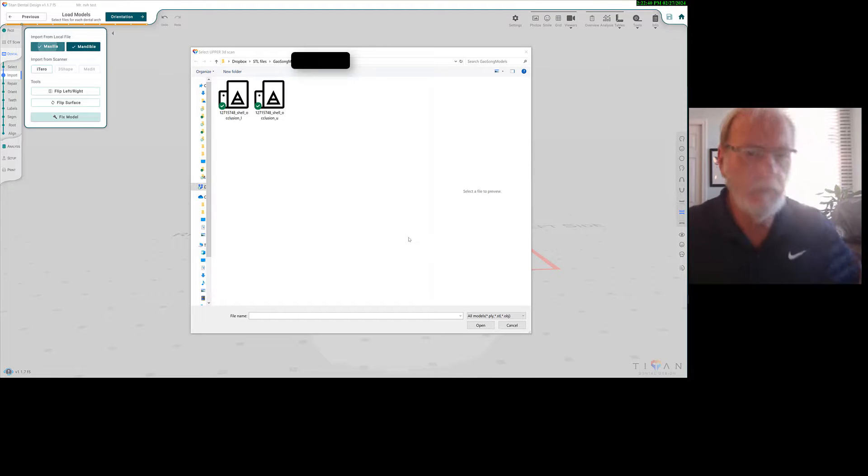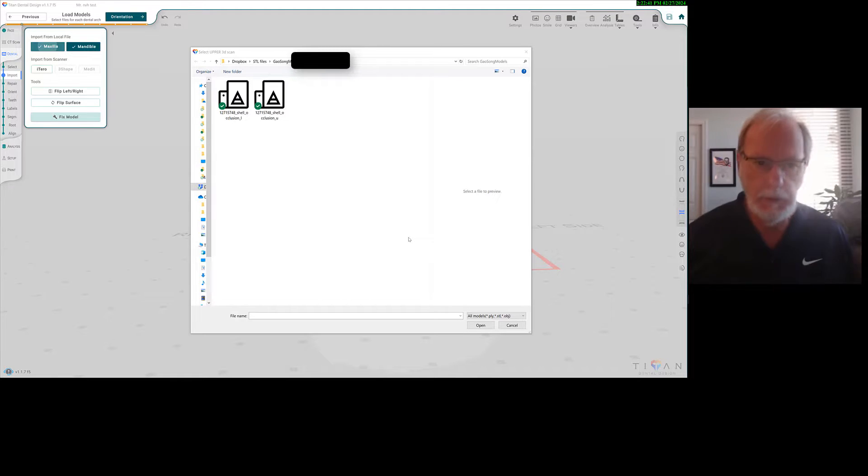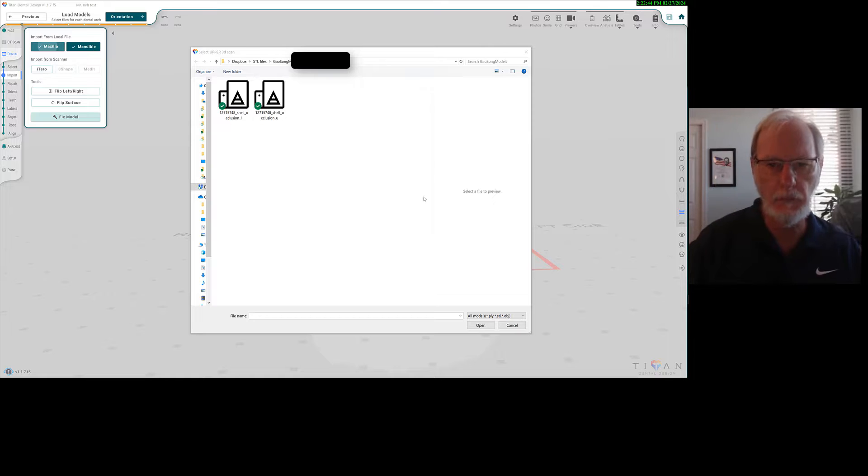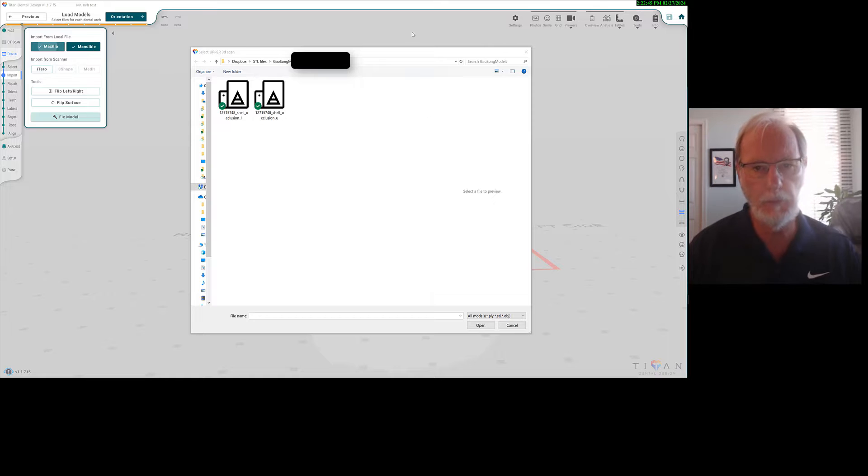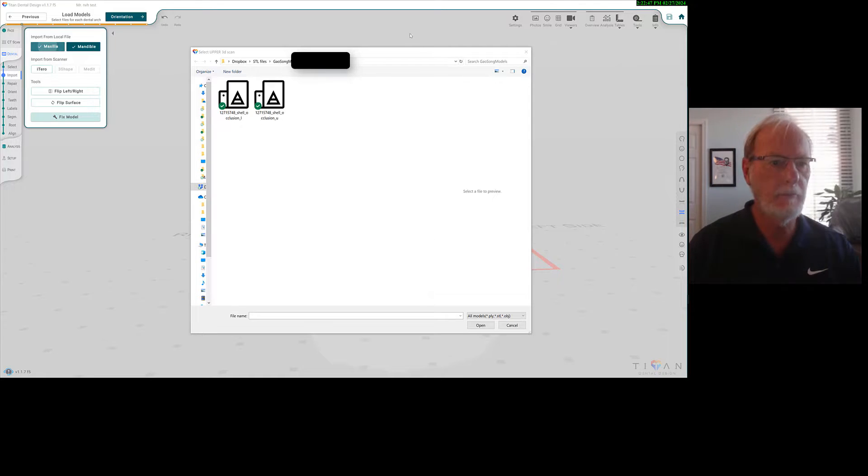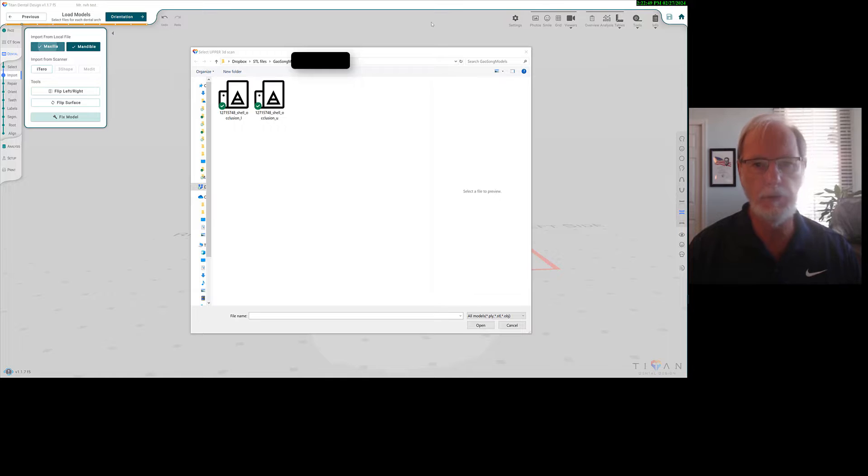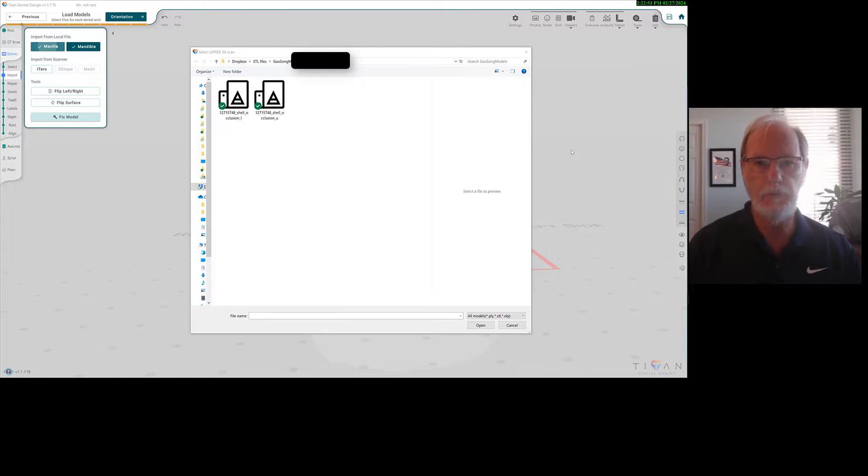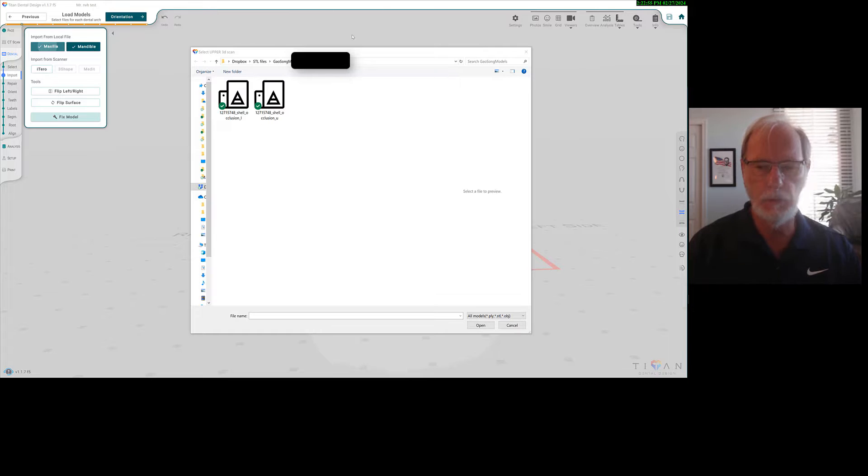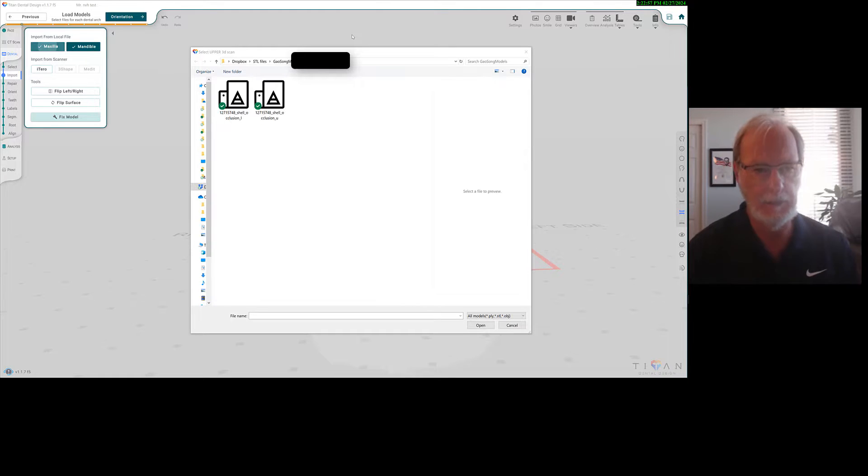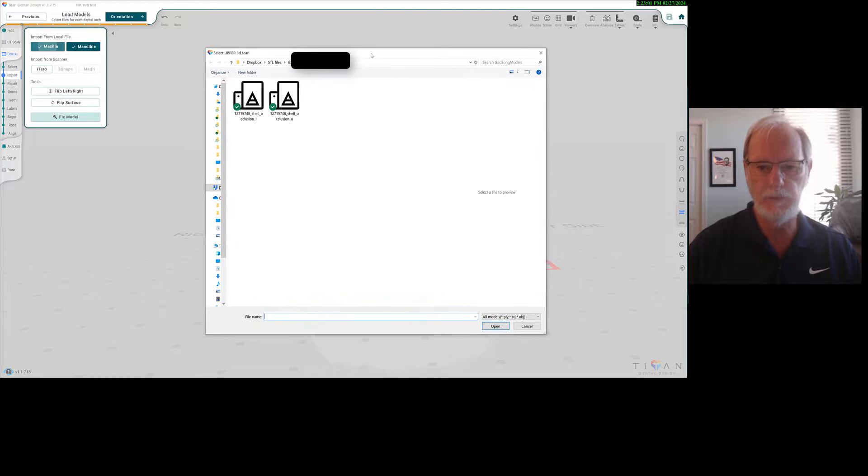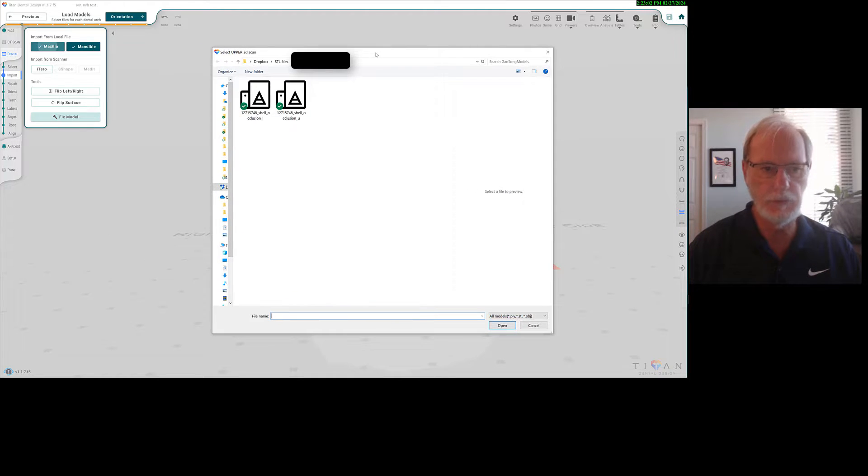Let me present to you the Titan software I've been working with for quite a while now. I kind of like it, so let me show you the good and what I wish we had in the software. I like it also because two orthodontists are actively involved in its development, so we have some very interesting features.